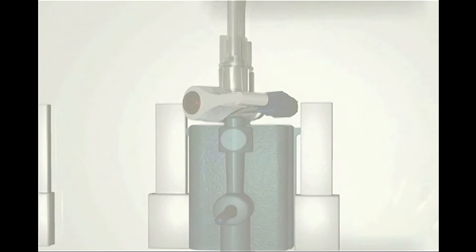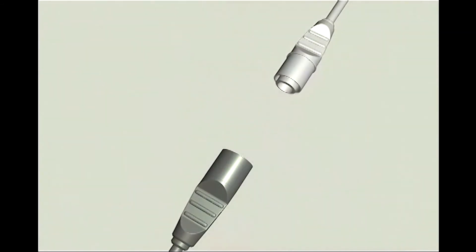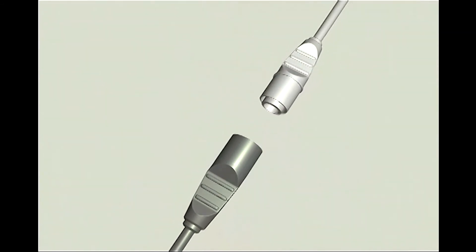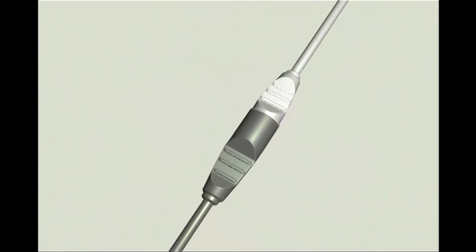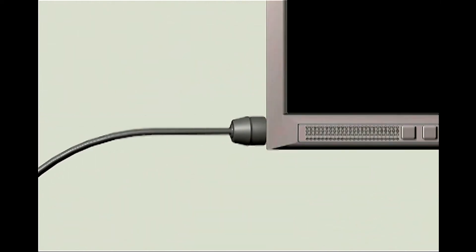Step 1: Connect the TruWave transducer's white connecting cable to the Edwards TruWave reusable pressure cable appropriate for the bedside monitor being used. Then connect the opposite end of the reusable cable to the appropriate pressure channel on the bedside monitor.